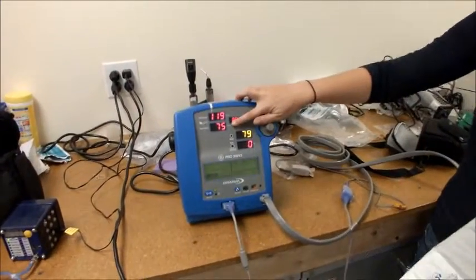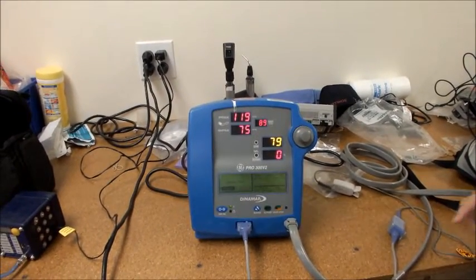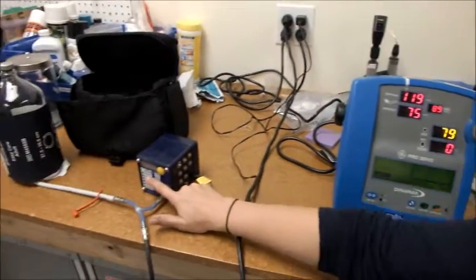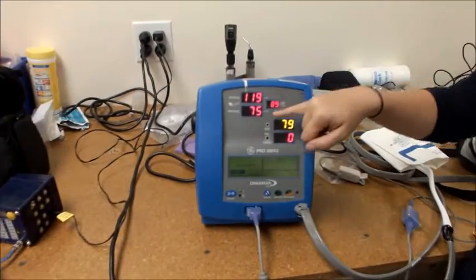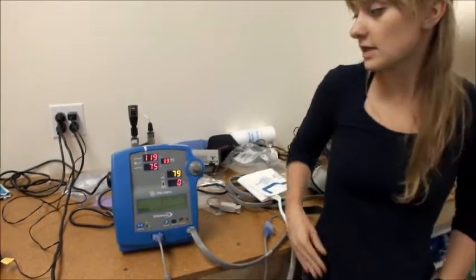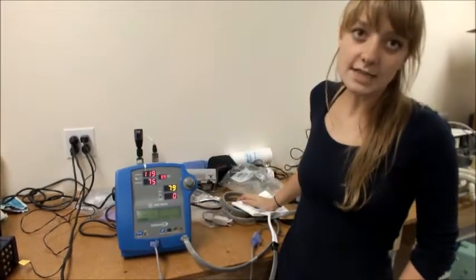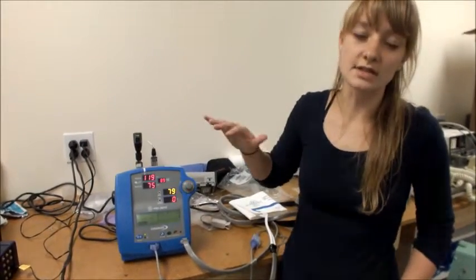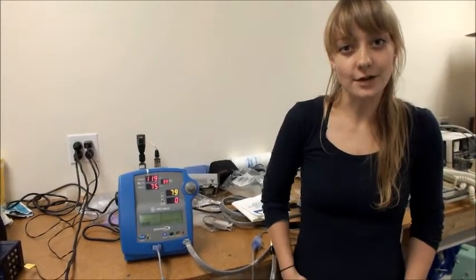Now you want to check this reading against the reading of a normal healthy adult, which is shown on the SimCube to be 120 over 80. Since each of these values are within five of the healthy adult values, this machine is working and the blood pressure is okay. When you're taking your own blood pressure, sometimes results may vary even more. If you have any questions about the results you get, you're welcome to ask for help.